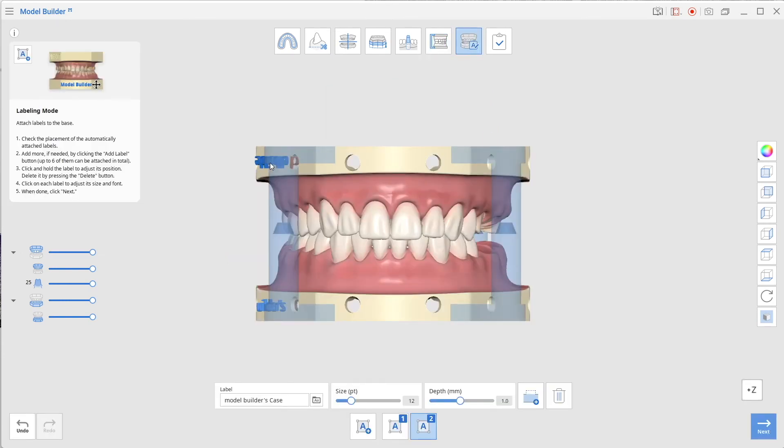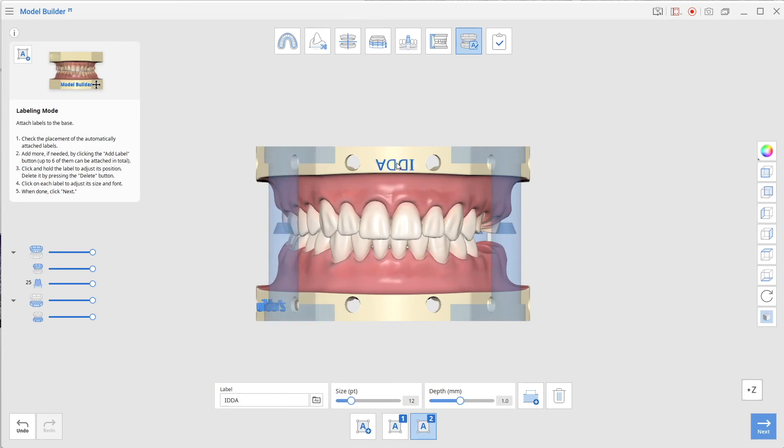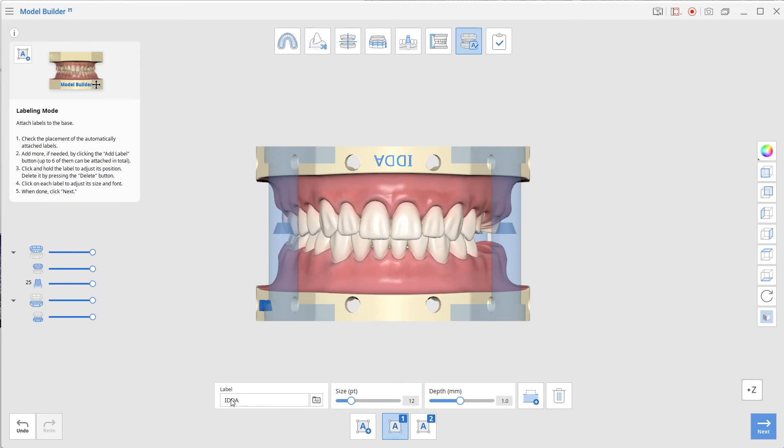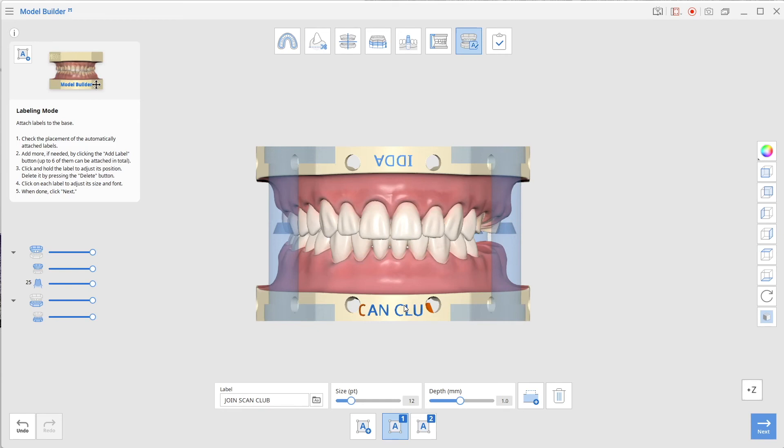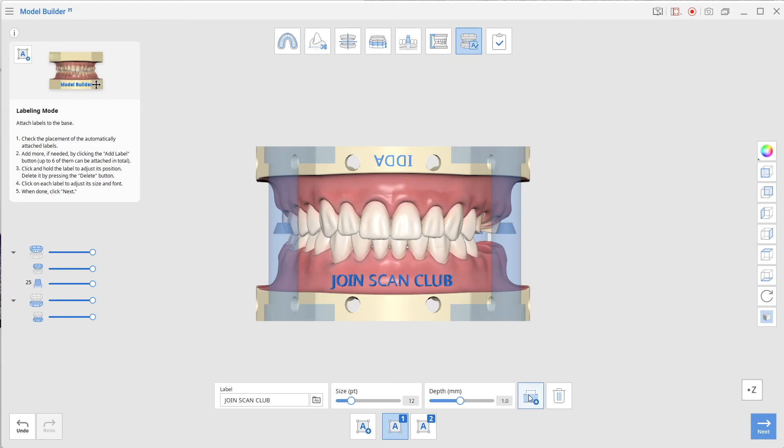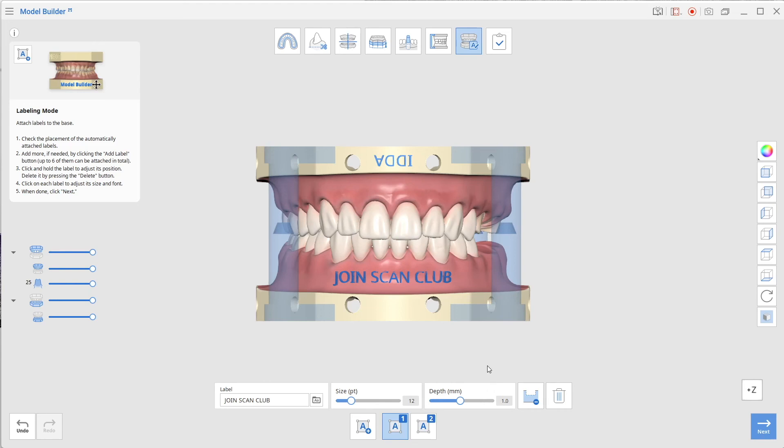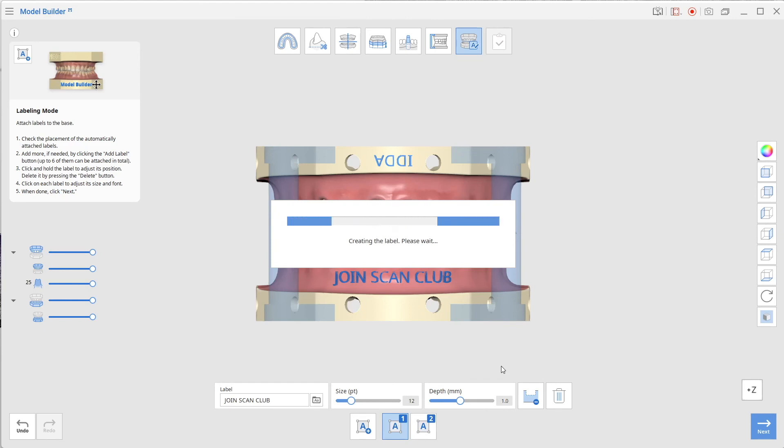We're on the next stage and we're just going to add a label. It automatically adds a label to each one of the models and each opposing arch. I'm just going to type into that, drag it and pop it into the middle. Second one I'm going to click that text again, double click over the text and then type in whatever I want. Let's get rid of that one so we've already got IDDA, let's put joinscanclub.co.uk at the bottom one. I'm putting that on purpose not just obviously to flag that up, but it's a long name and you can see when we've got drain holes you have to keep in mind that that text won't fit between those holes. So where do we put it? We can put it on the extension there, we can put it wherever you want. We can also change it to not only embossed but we can have it so that it's ditched in. Sometimes when it's ditched in the orange flag on one of the text means that we have to reposition it slightly.